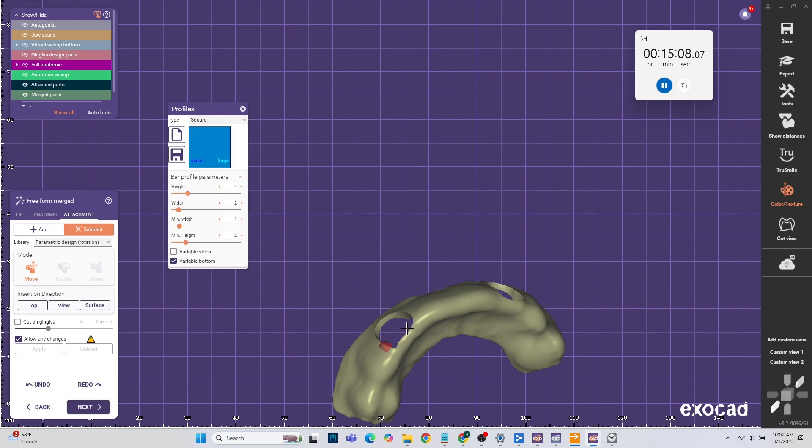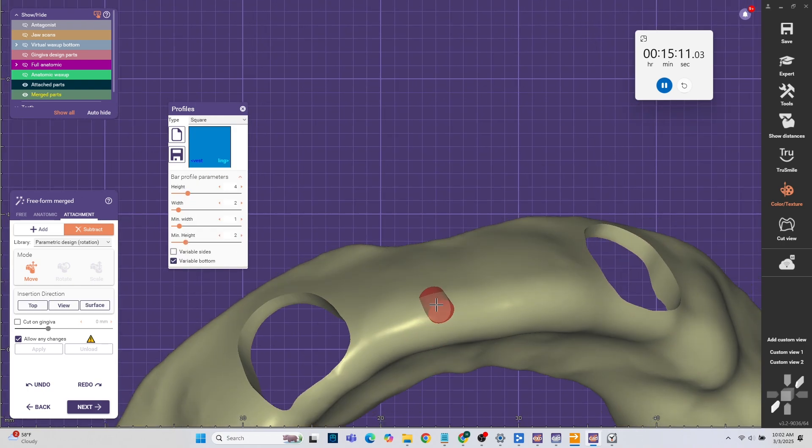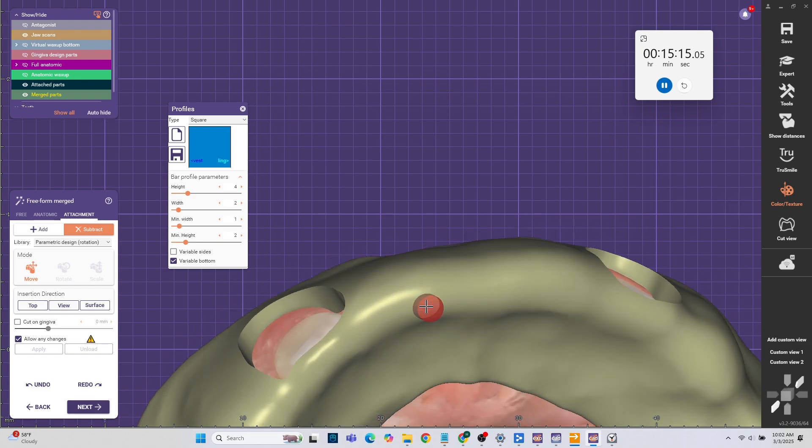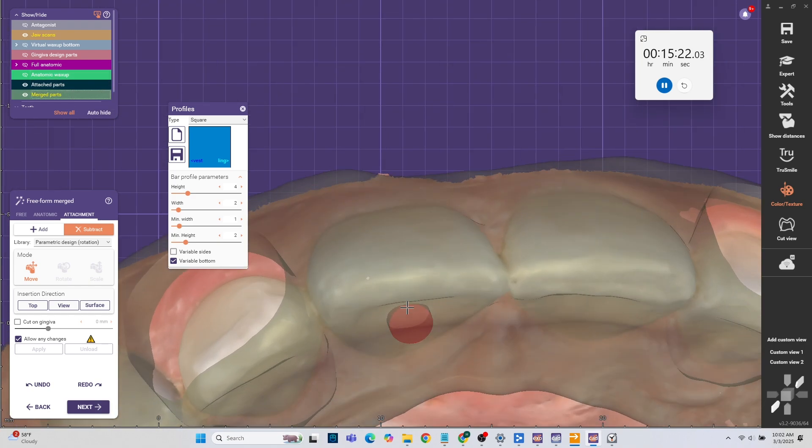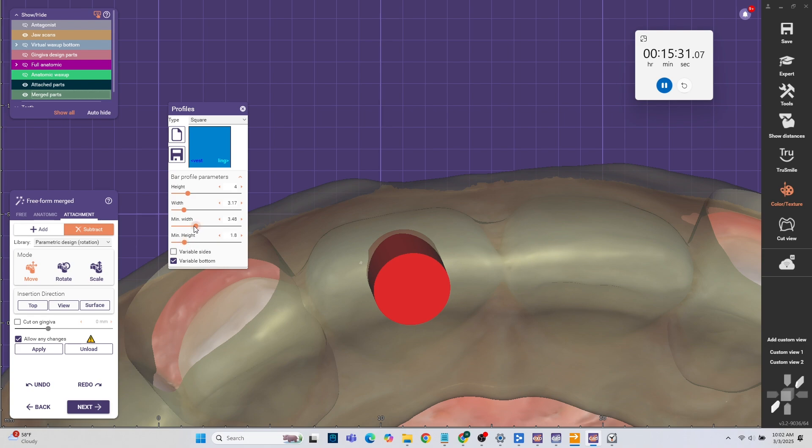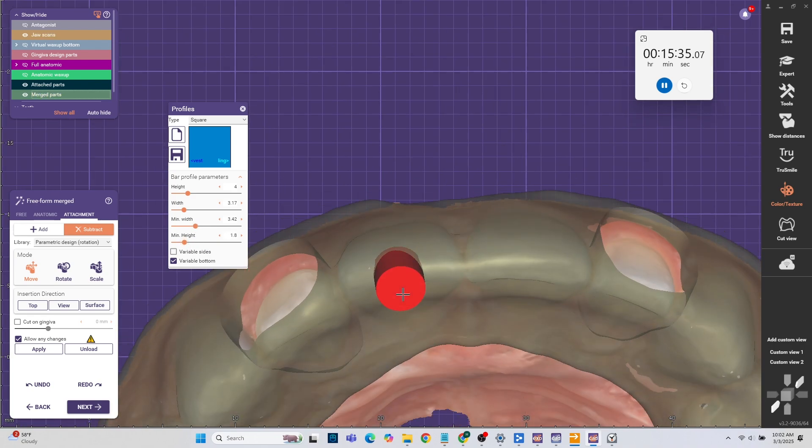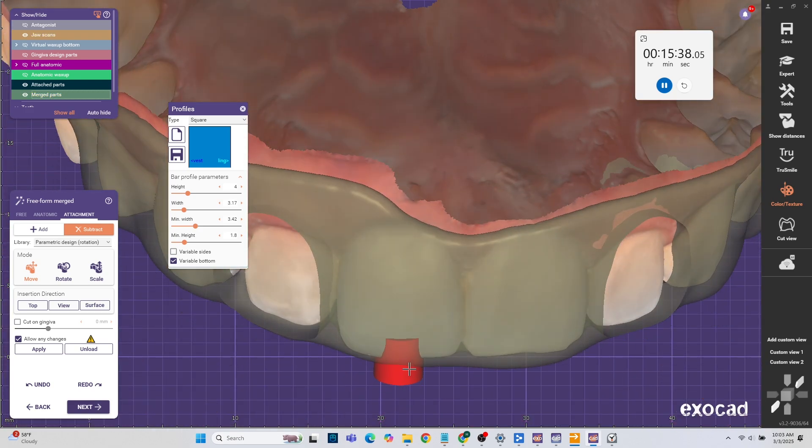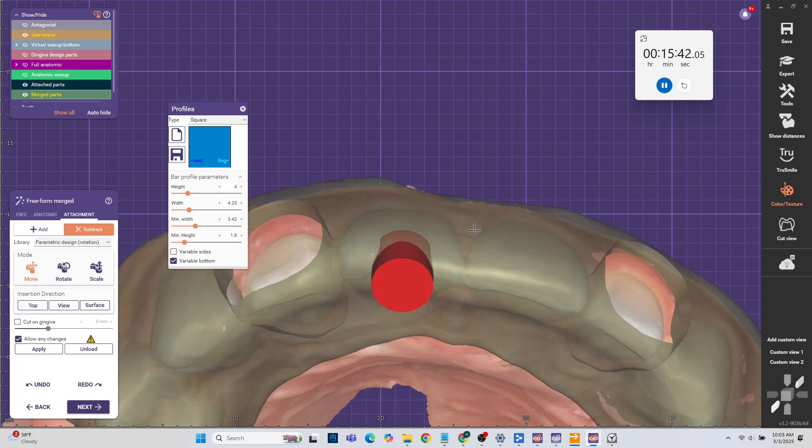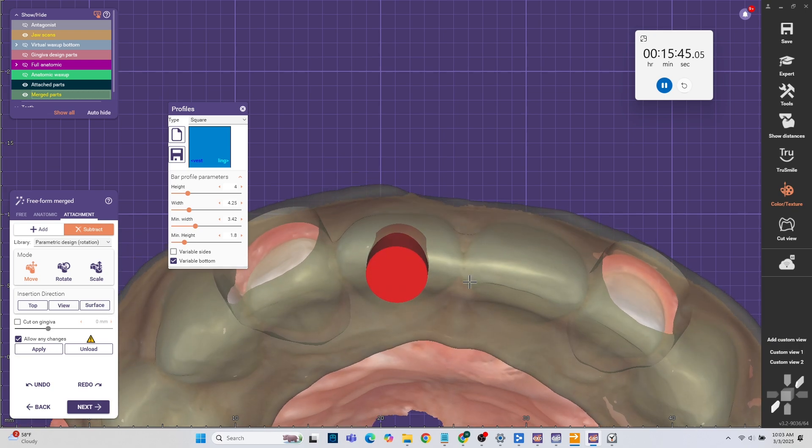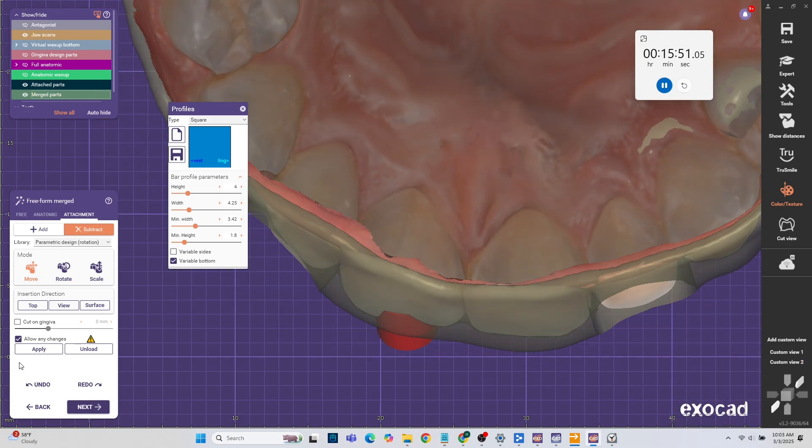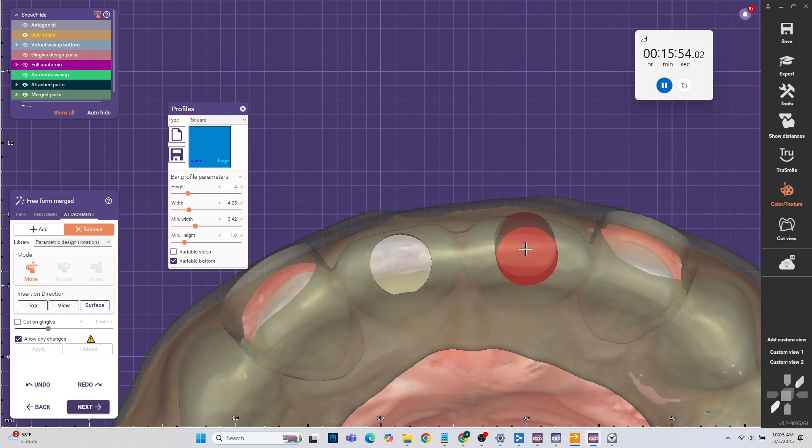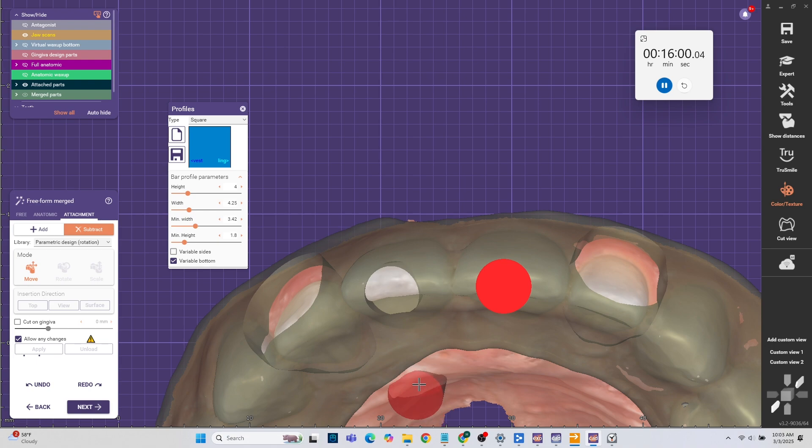From here I just want to make it a little bit more fancy. I want to make little windows to actually verify how it seats in the mouth. This little idea was kind of inspired by the Blue Sky Bio software where you make little holes, little windows to verify that your implant guide seats perfectly. You basically just want a random shape that's a little bit long that reaches all the way to the tooth and just hit apply again. You can put it in the central, in the middle of the tooth, you can put it in between two teeth just to verify it's seating. It's your decision where you place it or not.